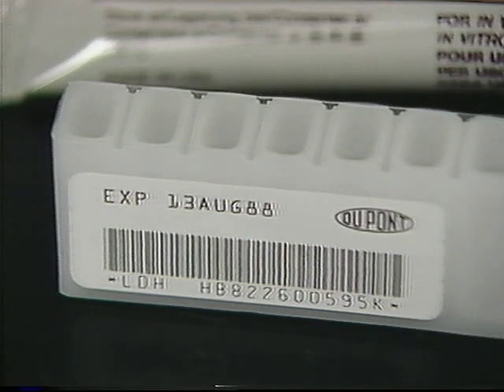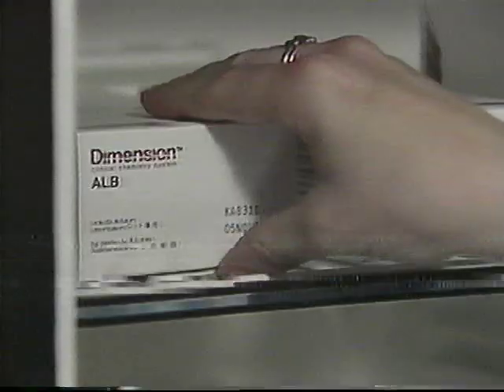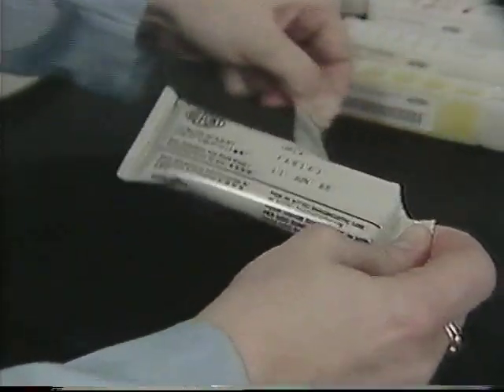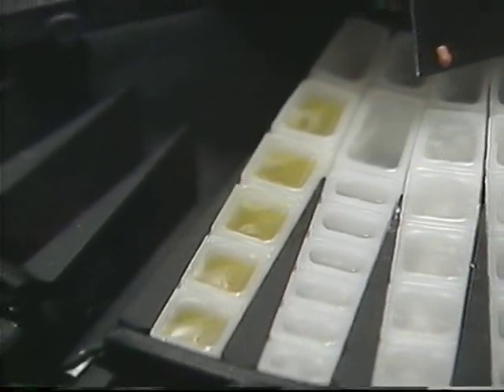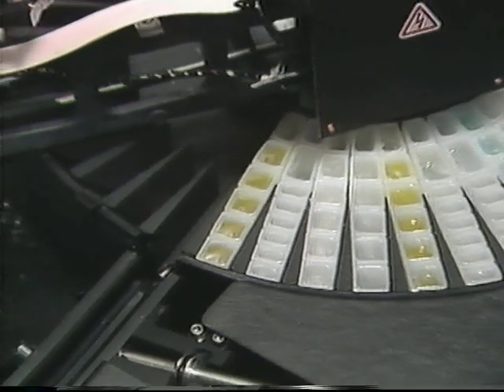Encoded on the barcode label of each Flex cartridge is information pertinent to its reagents. This information includes the method, lot number, sequence number, and expiration date. Flex cartridges have a refrigerated shelf life of up to 1 year, and if stored unopened, a 1-month expiration on board the instrument and up to 3 days expiration after a well is opened.